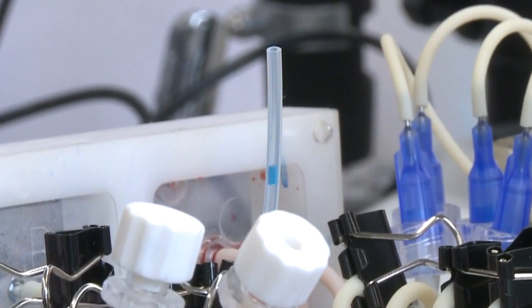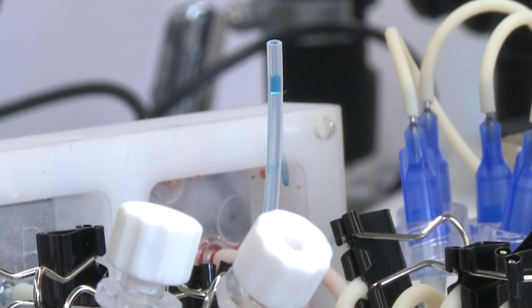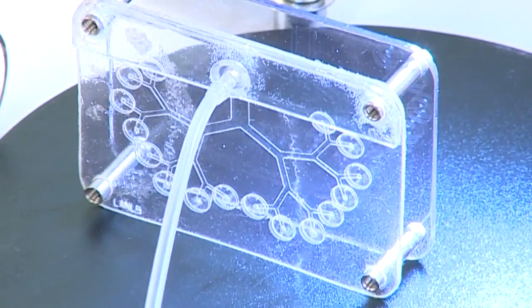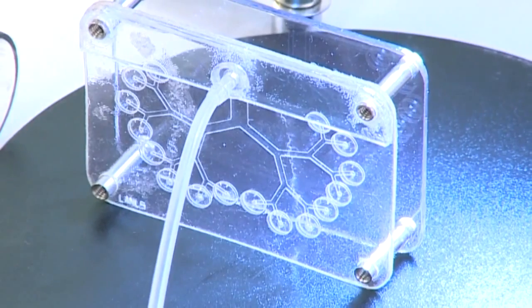News 13's Lisee Mitri shows you how it works. It breathes in and it breathes out. This device here is Pulmo, our artificial lung. These tiny pieces of plastic are all part of a project at Los Alamos National Laboratory that's been in the works for three years.